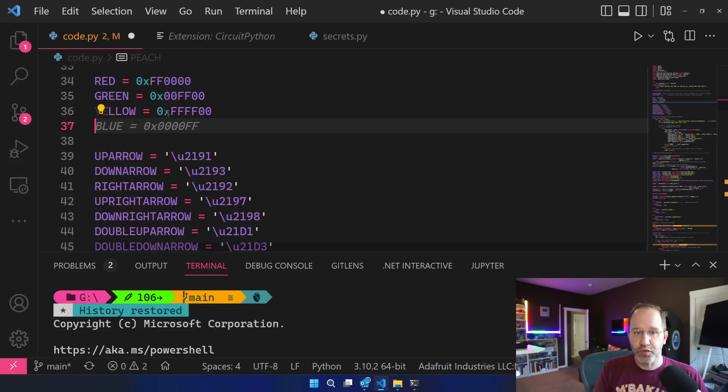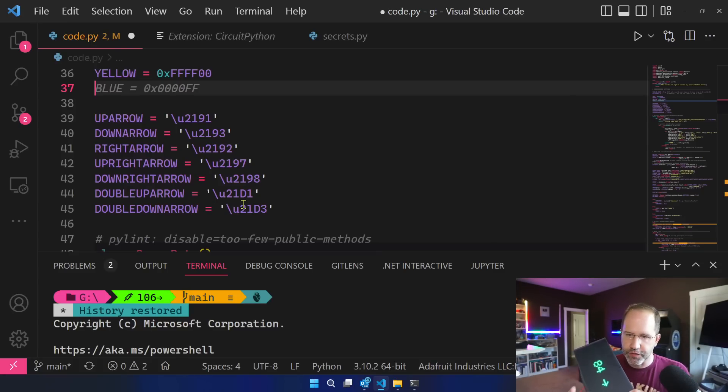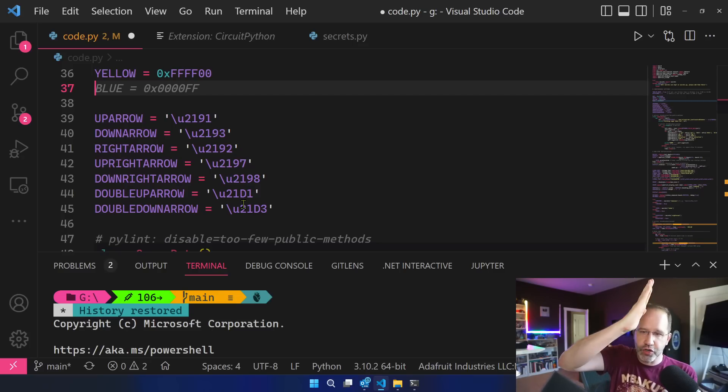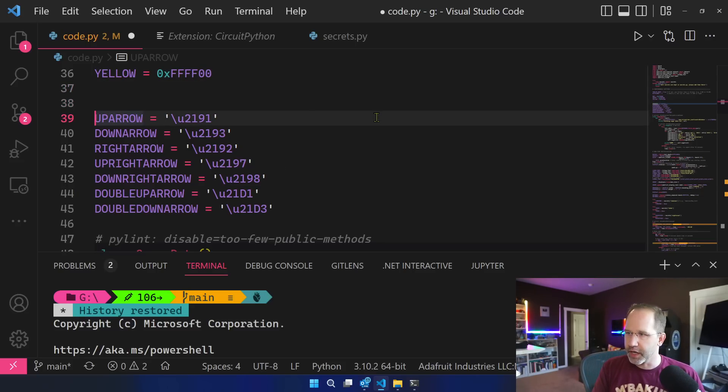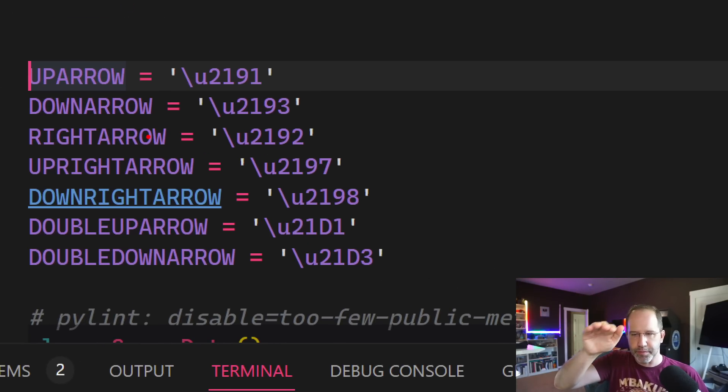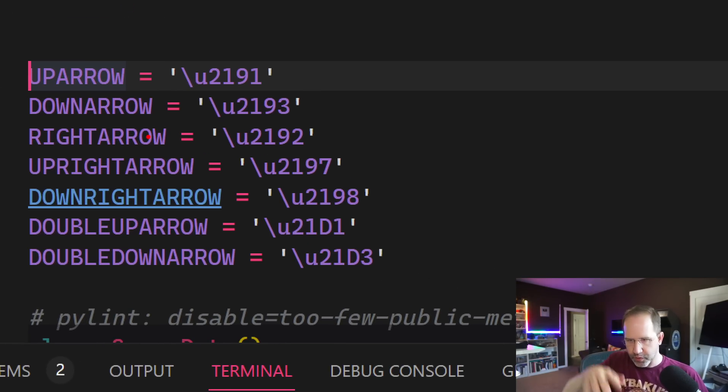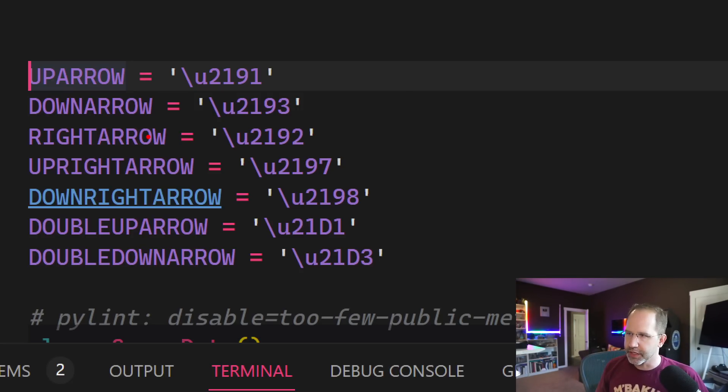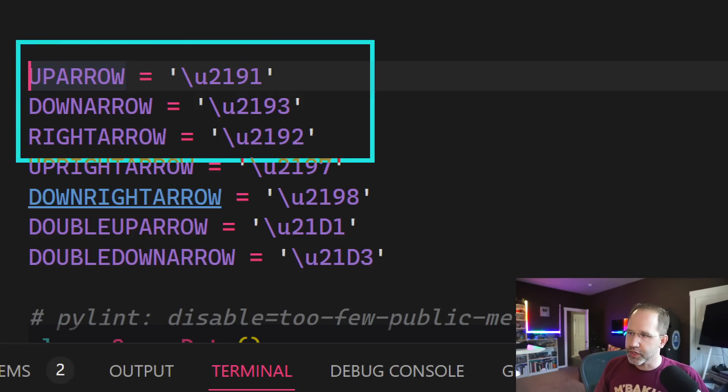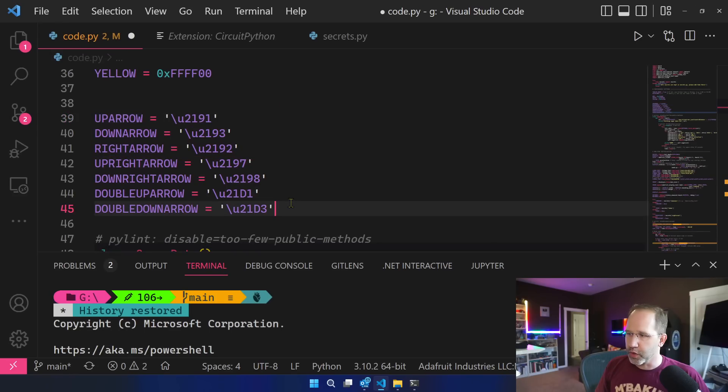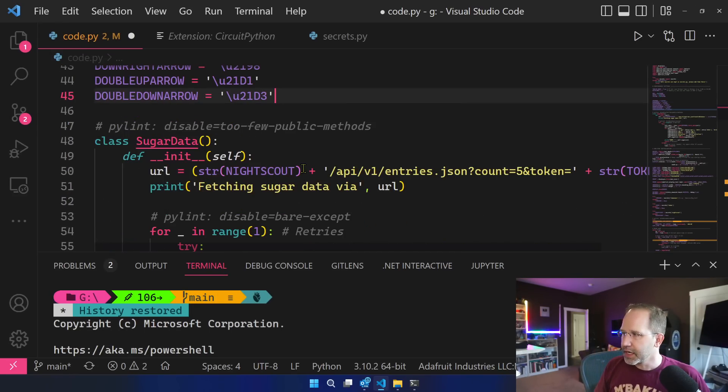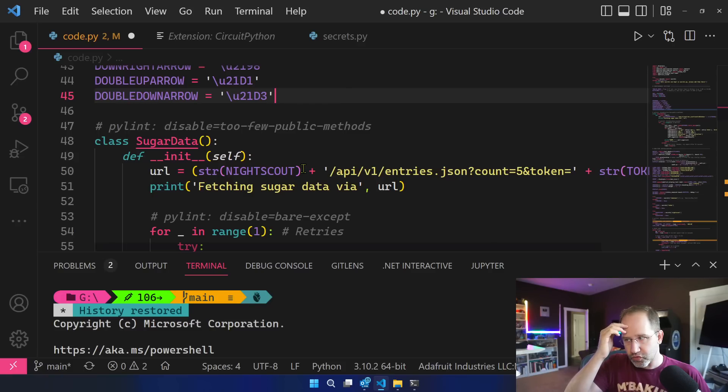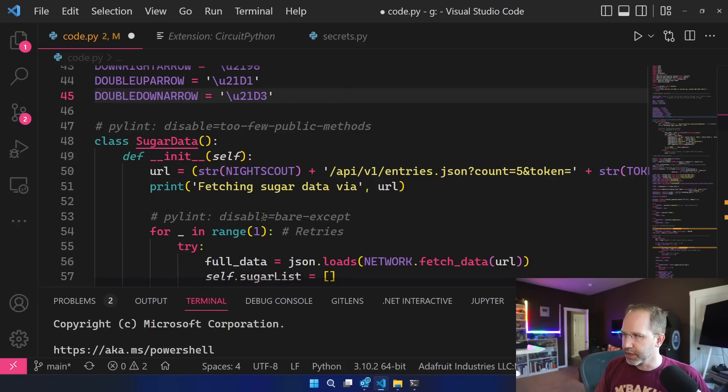That made things really fast. Then I was going to put Unicode code points for these glyphs for my trend line. Is my blood sugar going up or sideways or down? So when I started doing that it was almost like in Excel when you start typing Monday, Tuesday, Wednesday and then it goes Thursday, Friday, Sunday and gives you the whole thing. Or you start typing January, February and it auto completes it. This is really cool. So it noticed as soon as I said up arrow and down arrow that I might want to do other things so I've got those glyphs ready to go.